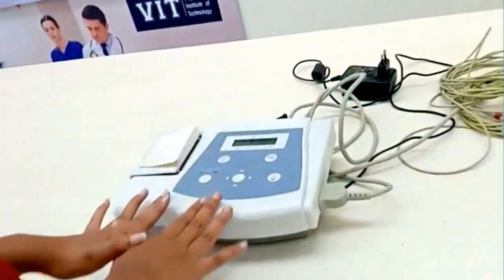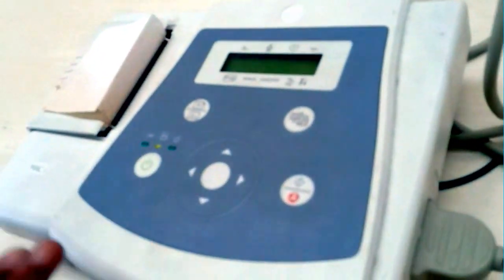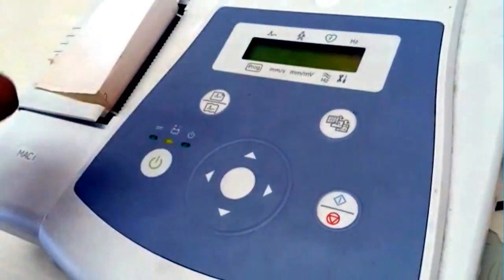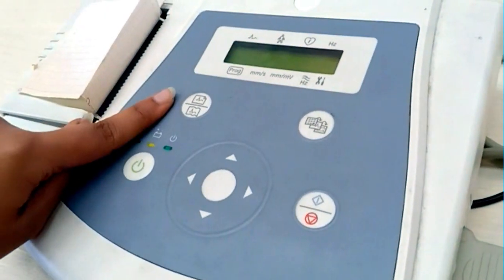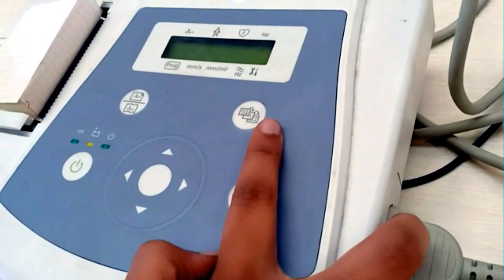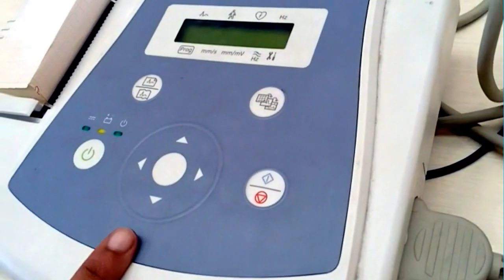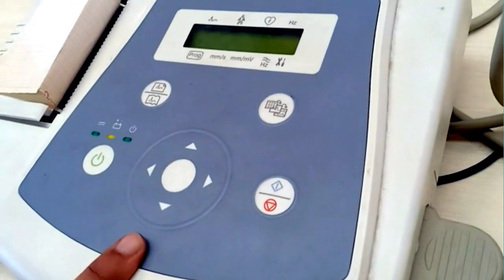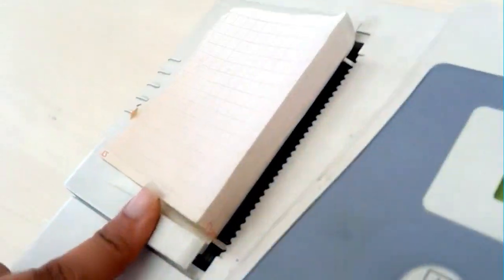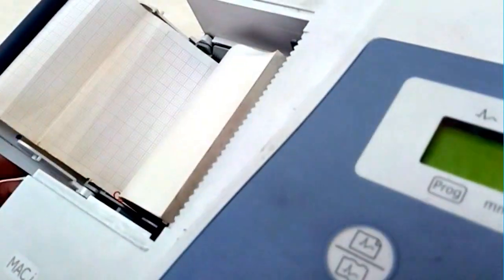This is the ECG machine. Here we can see the power button, the gain button, the monitor screen button, and the parameters section where we can change the settings. This is the ECG paper roll where the ECG is printed.